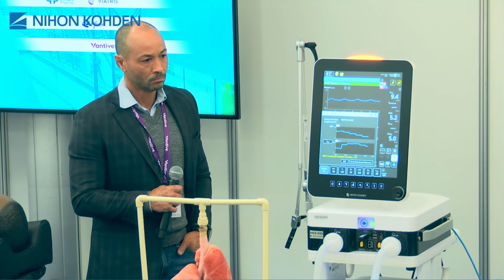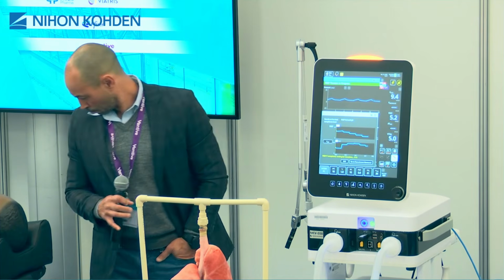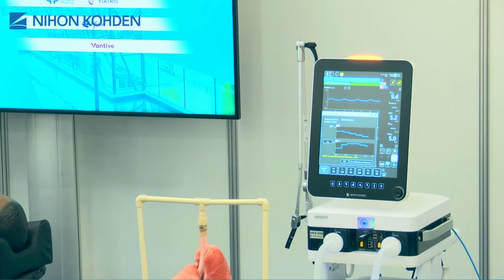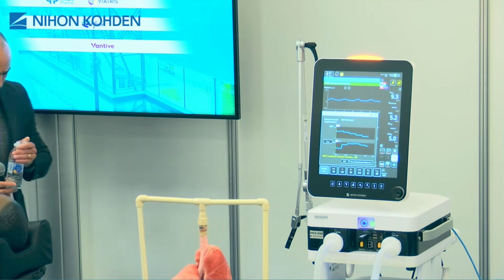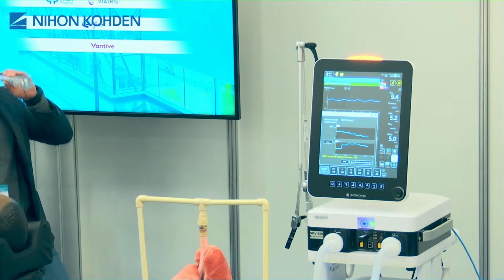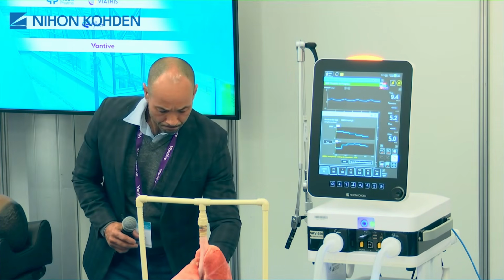The recruitment to inflation ratio is just a different way of doing it, but I have to tell you that nowadays we have good evidence that it is, let's say, a low sensitivity maneuver, okay? Because think about the following.